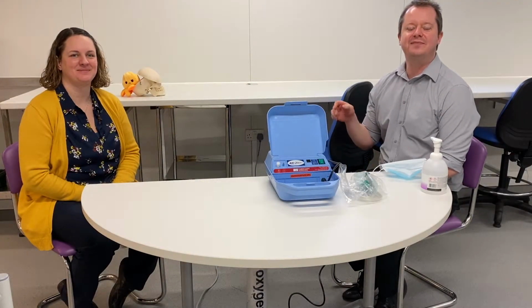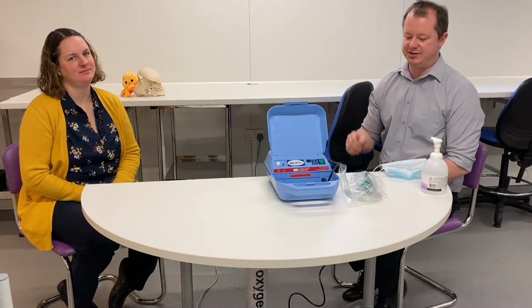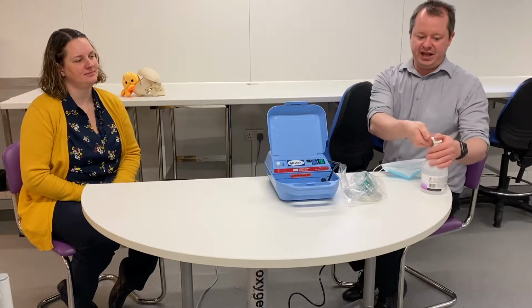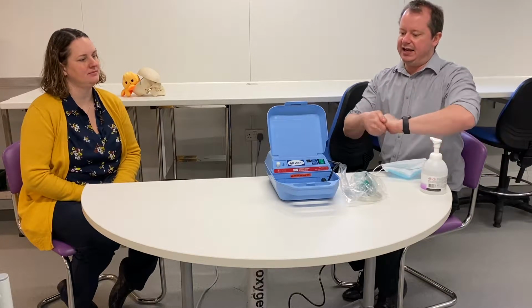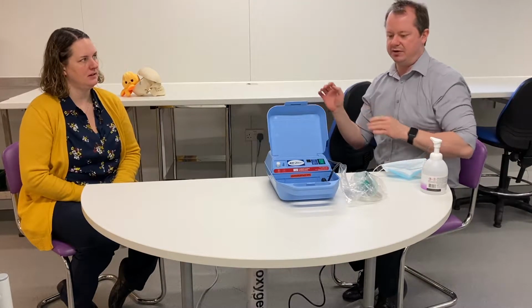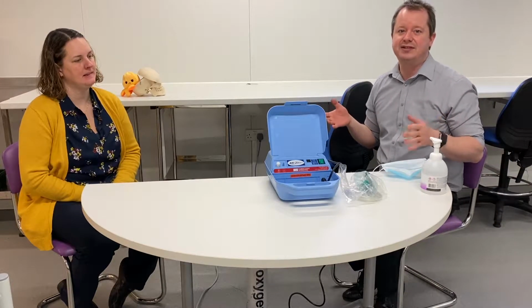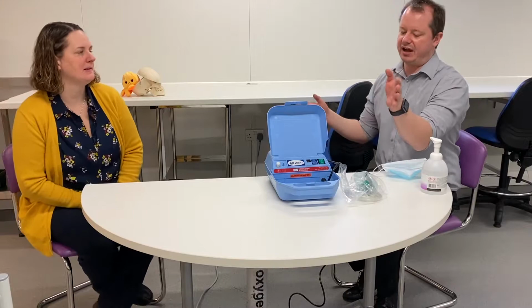Hello everyone, so in this video we're just going to talk about nebulized medication. For this you will either need a nebulizer machine or an oxygen cylinder, which we'll go through at the end.